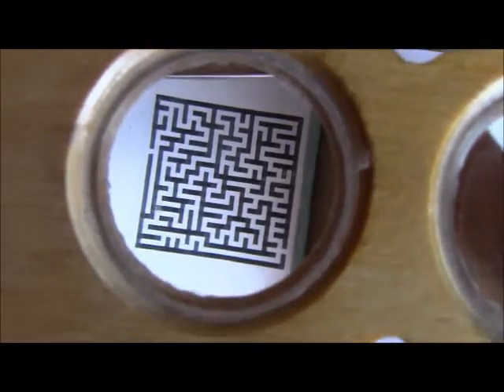With the maze, which is a harder exercise, you would try to solve the maze obviously. Depending on whether you're any good at this, whether you can align your eyes, the image you draw will make sense or not.